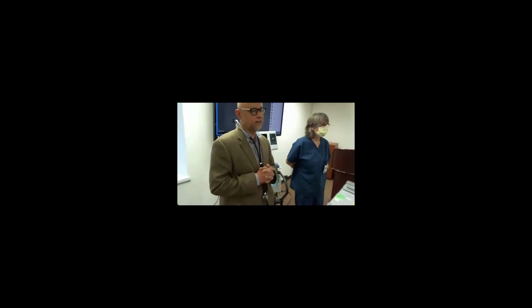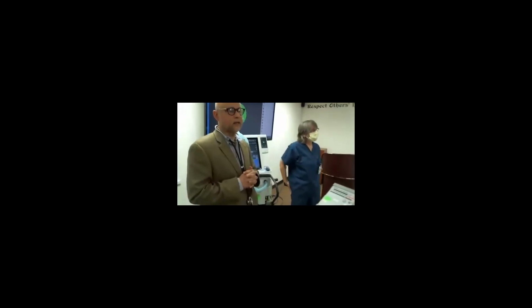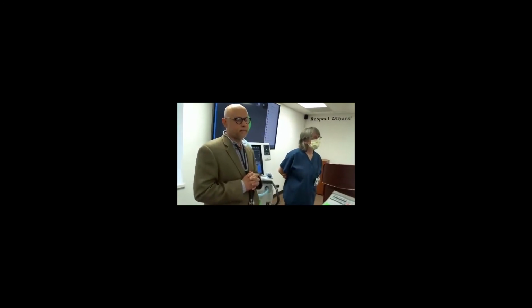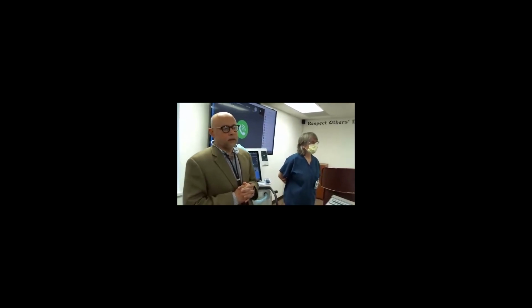Yeah, the new guidelines are lower tidal volume. Right, I thought it was higher. It's more like 4 to 6. Yes. So I would start a little lower in the emergency department and see if I get good oxygenation and good ventilation. Remember that there are different things. Ventilation is getting rid of CO2, oxygenation is oxygenating the patient.